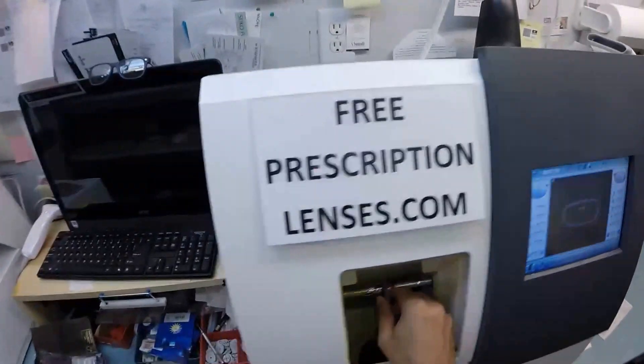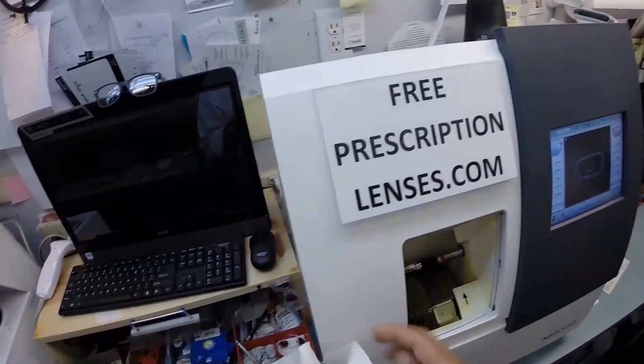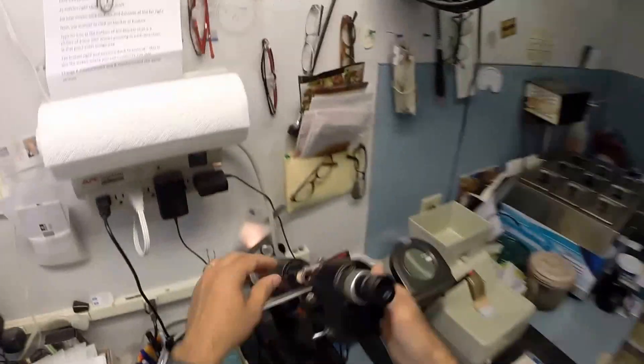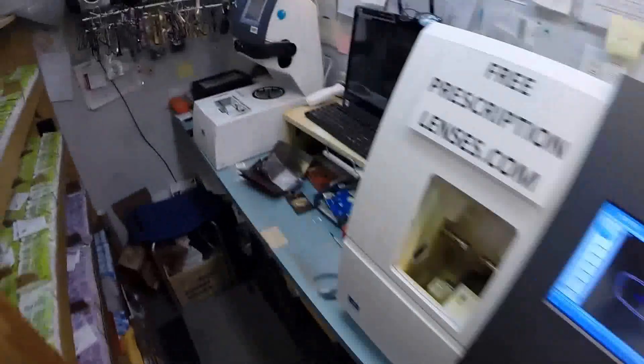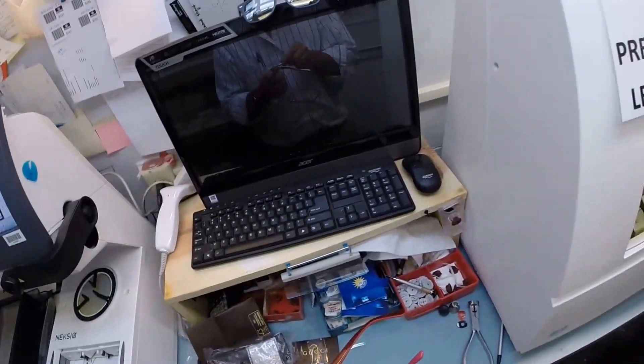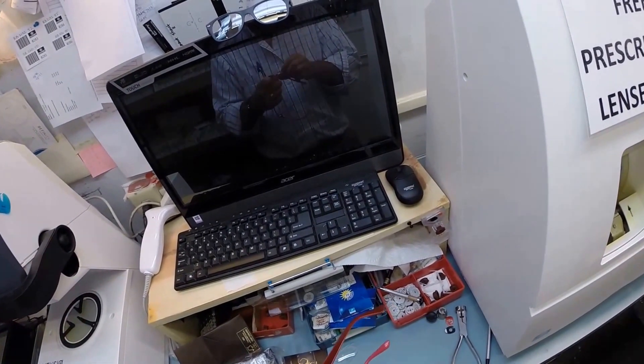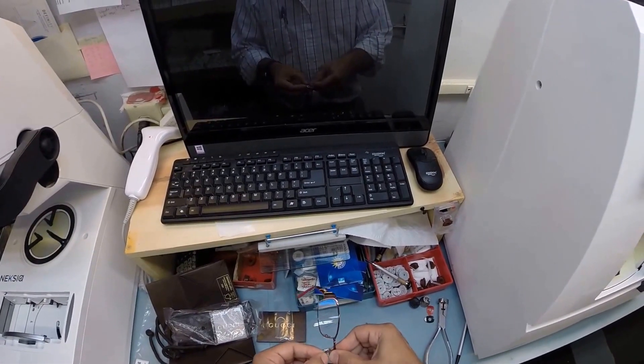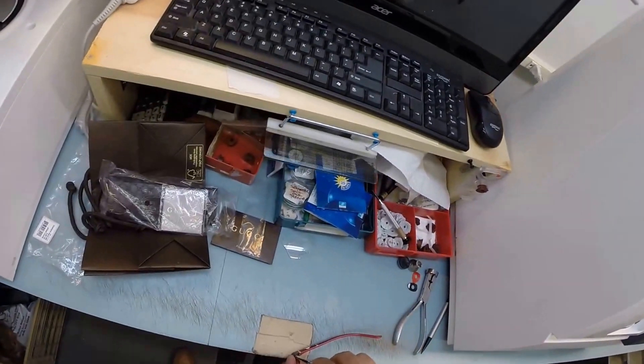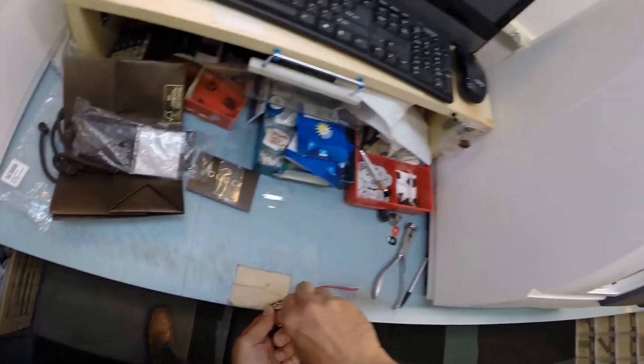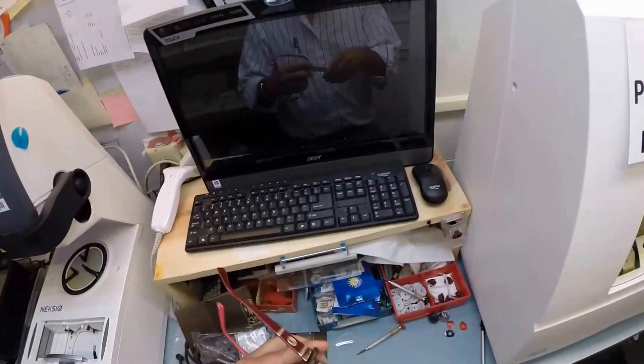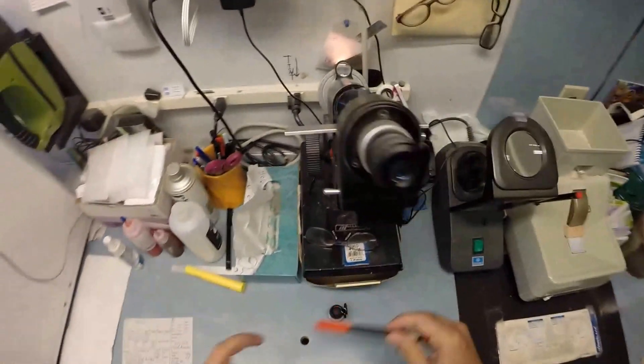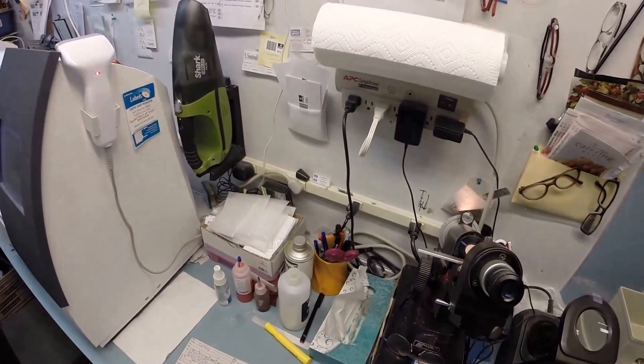Your left lens is done. Let me take that out of the chuck. Thank you, Chucky. Chucky baby. Can I call you Chucky baby? What'd I do with your frame? I've already lost it. Okay, so let's go back down here. Lefty Lucy. Tuck the lens in. Pop that in there, there. Righty tighty. Do you speak Spanish? That was Spanish, by the way. Righty tighty. And let me use my pen to darken your optical center again. Again, let me recap. Oh, you thought I was done with that joke. No.